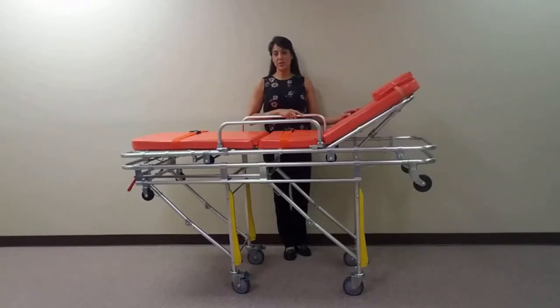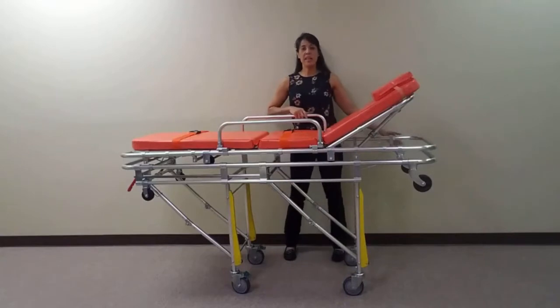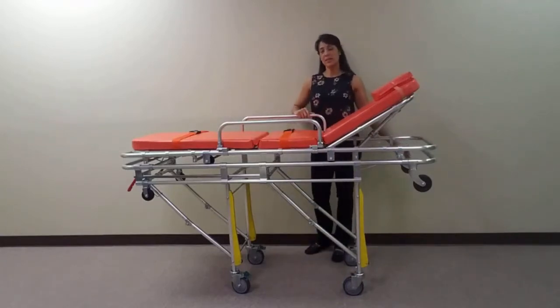We would like to introduce you to the MS3C335, our emergency EMS ambulance stretcher. These stretchers are ideal for comfortably transporting individuals to and from appointments without the hefty cost of EMS ambulance services. With a maximum vehicle loading height of 26 inches, this unit is designed to be used primarily in transportation vans.